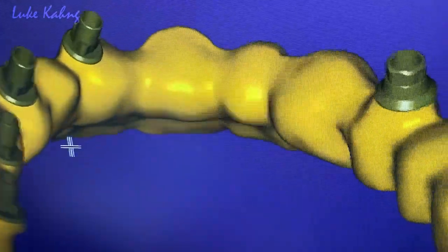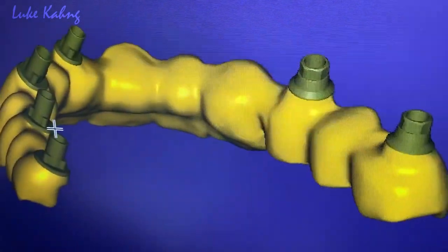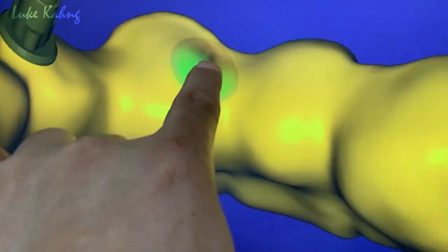We will go and try to make the hygiene underneath. I cannot make it really football shape, but it's just a little bit here — so here will be better on the top and indentation.